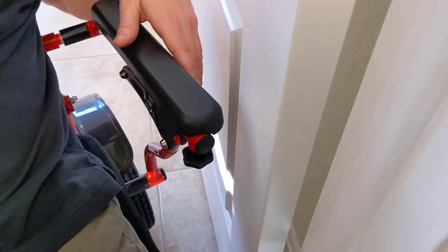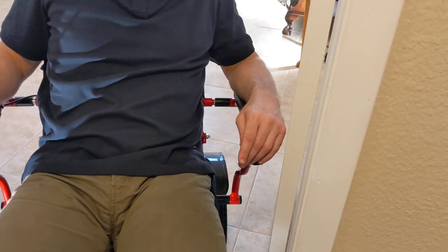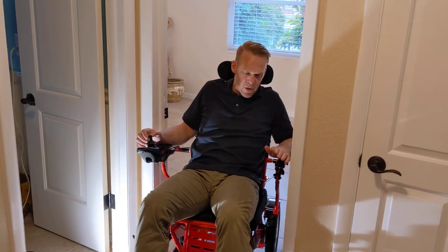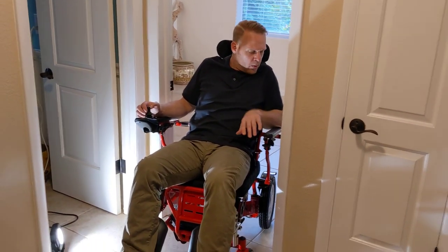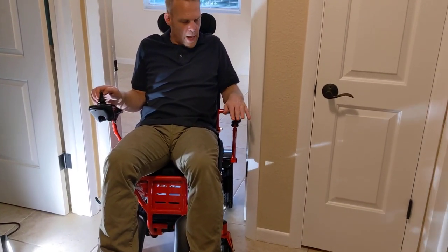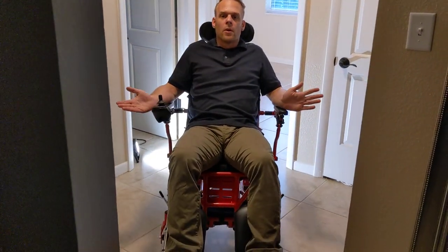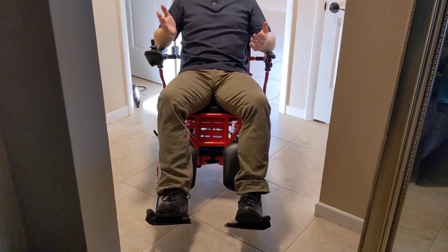So I'm going to have to turn a little bit. I just made a little bit of a turn. Keep in mind the wheels are kind of in the front of the chair here — those are the turning wheels if I'm going forward. I've got these armrests through. I'm pretty happy. Not going to celebrate just yet. There we go, folks. Now take a look at the timestamp on the video. I didn't pretend to make this to be an easy feat — I just wanted to show how it can be done, and the level of caution that it should be done with if you're going to be in a Falcon that's kind of dressed up like this going through relatively narrow doorways. Folks, thank you so much for watching this video. We hope that you make a great one.